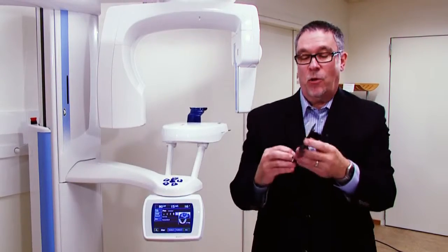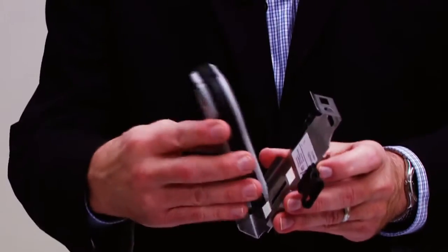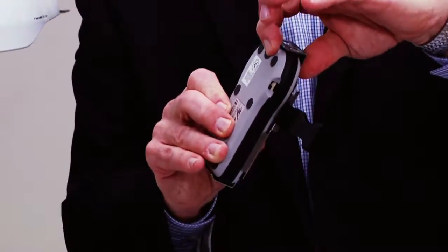The first thing you do is you take the holder, you take your Piranha, and you snap it into place, like so.